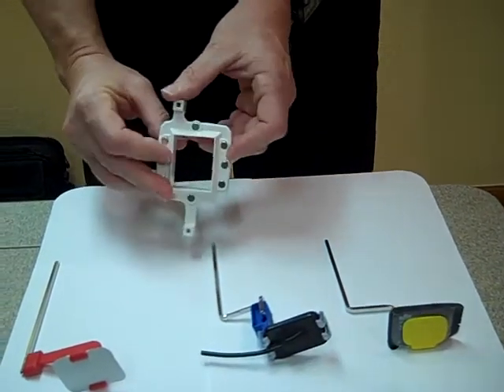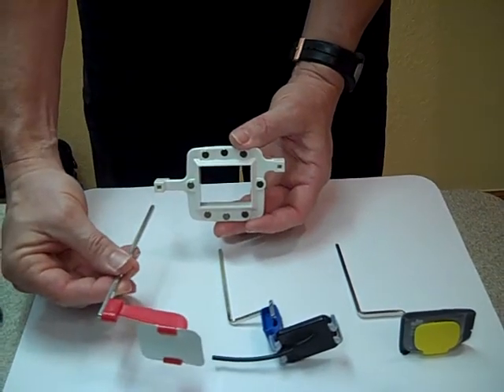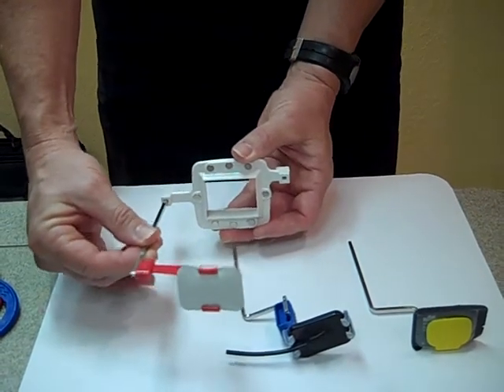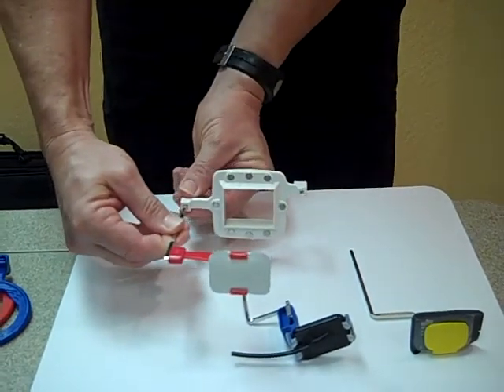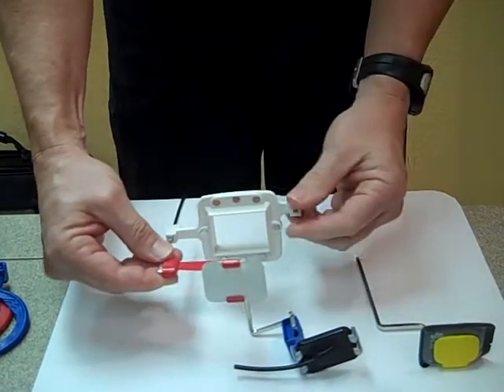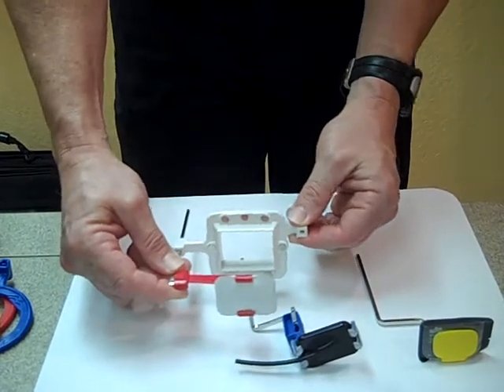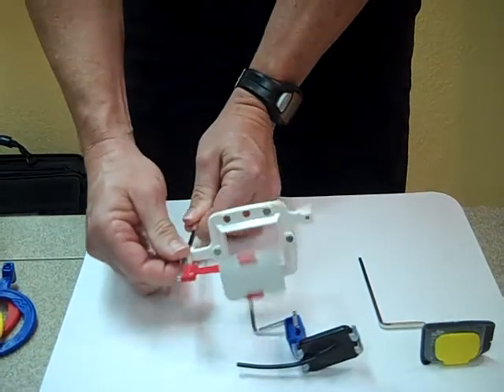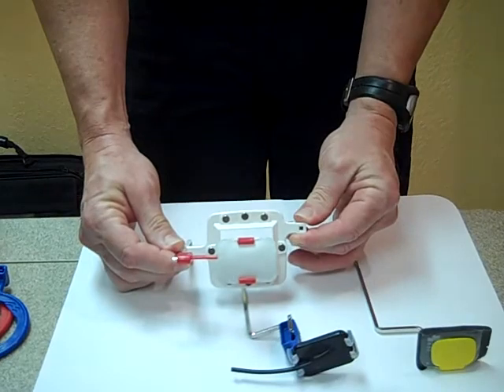For your bite wing, you'll simply slide the bar into the long arm of the alignment ring. When you slide this bar in, as with any of these bars, you want to make sure you're holding this square area. If you try to slide the alignment ring from the top, you'll notice it's biting on the bar and it won't really slide. So you simply slide it back and forth and you'll have perfect alignment every single time.